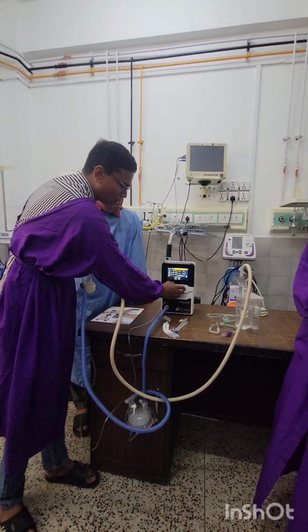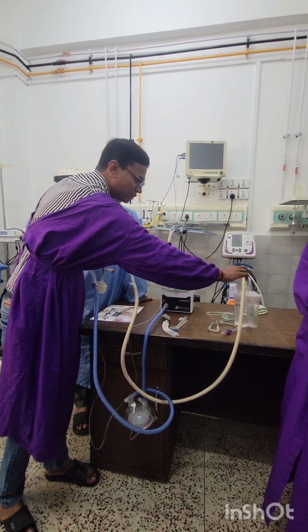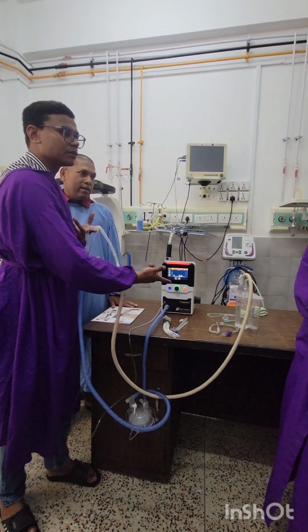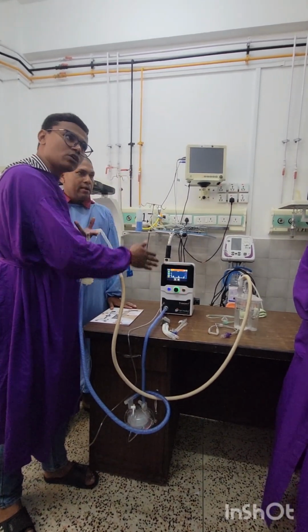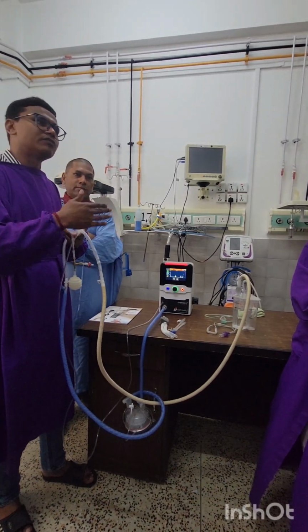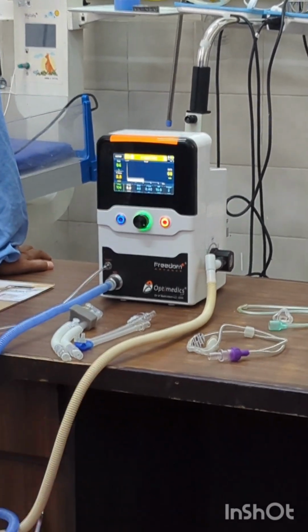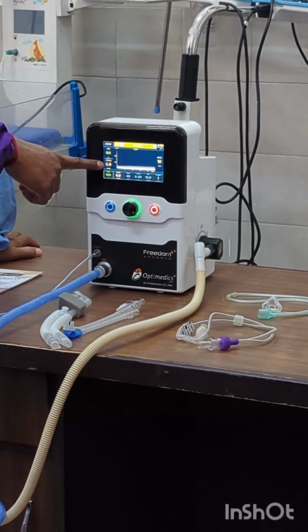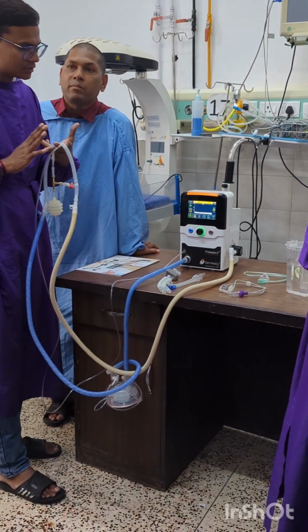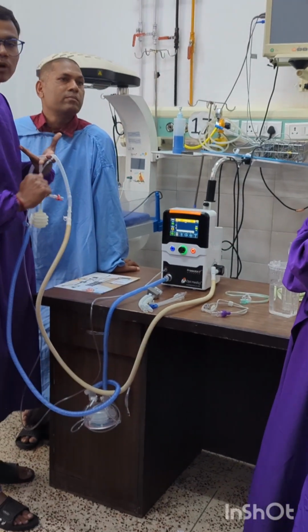And if the pressure goes above, I will show you immediately. Right now 4.5 is there. If this goes into it, what will happen? The machine is trying to deliver the pressure, but for safety, the machine cuts off the flow and opens the safety valve to release the pressure. That will avoid a pneumothorax-like condition. So you need to set your baby's pressure. After setting, even with a leak, the machine will deliver the same pressure we have set. It will compensate and increase the flow gradually depending on the leak. So after some seconds, it will reach 5 cm H2O. This is how the CPAP mode is working.